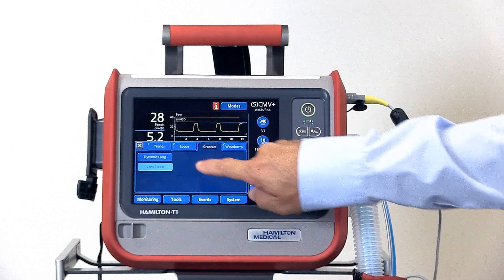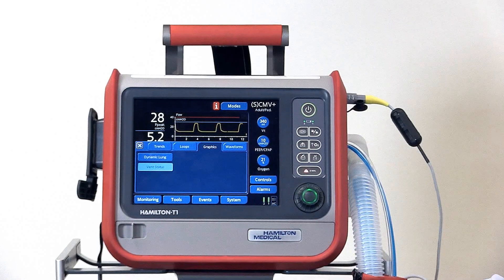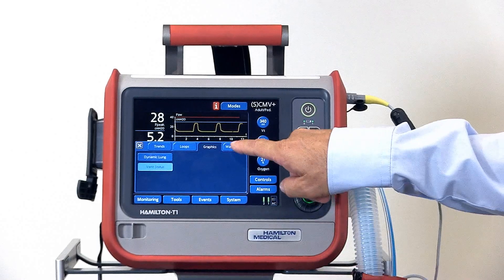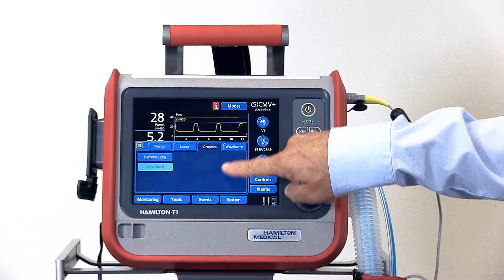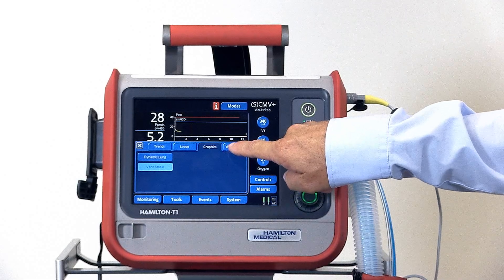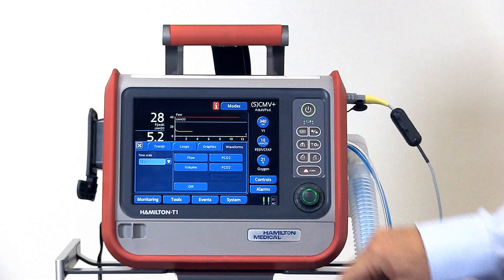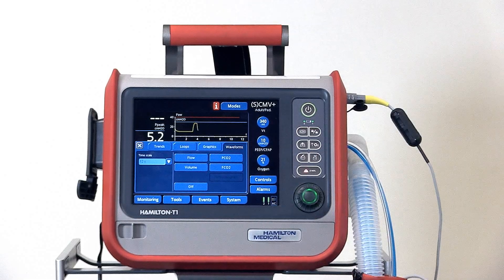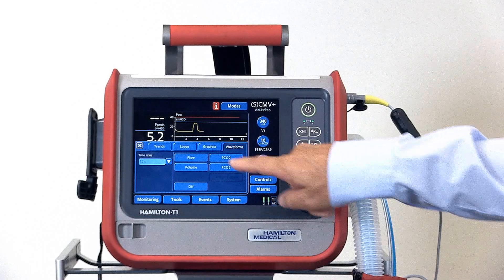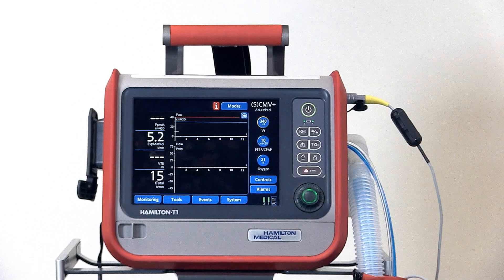We can also change to display different waveforms. We'll open up the graphic window again and on the right side under waveforms, let's display a flow waveform for example.